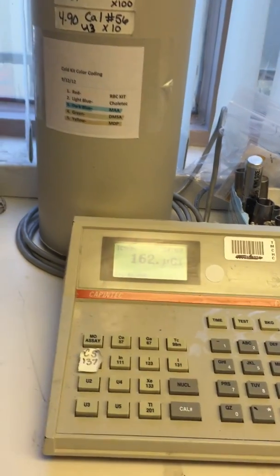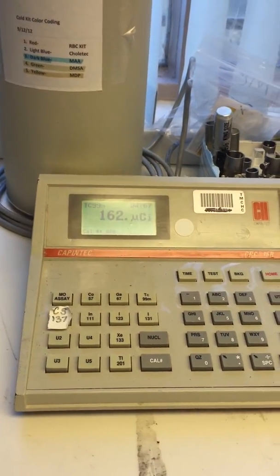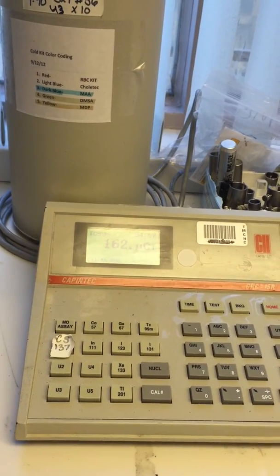Now we're going to do tech next. Looks like 162. That's up in our range.